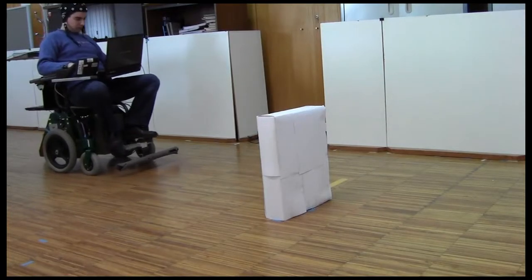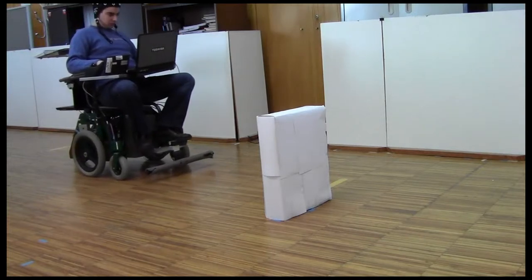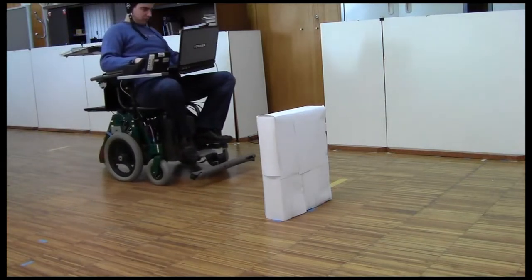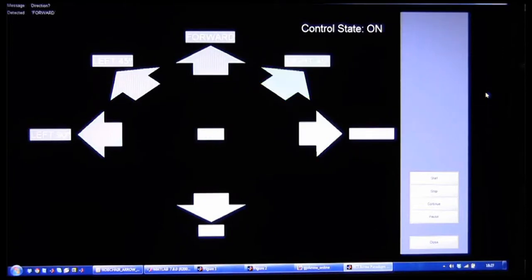Input commands are provided in discrete time intervals. This interval depends on user's performance, ranging typically from 4 to 6 seconds.